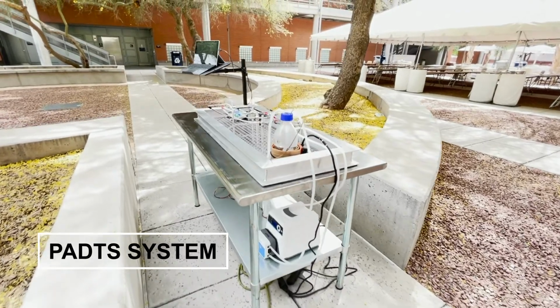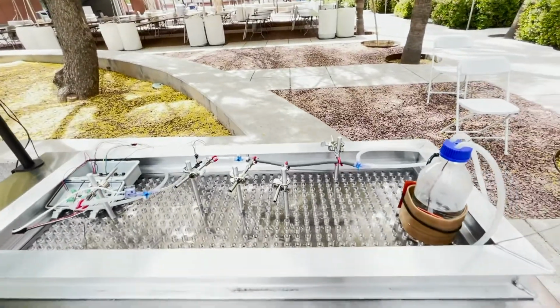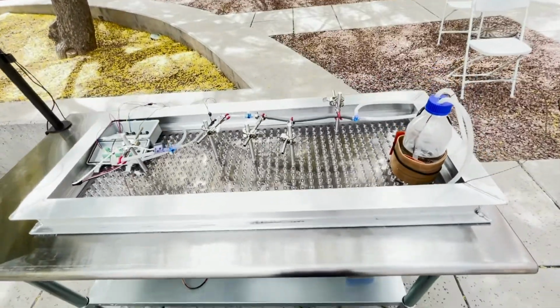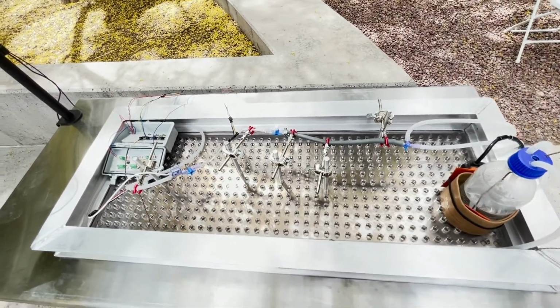The Peripheral Arterial Disease Catheter Efficacy Test Setup is a low-cost, high-accuracy test fixture that enables verification and validation activities of medical device testing.